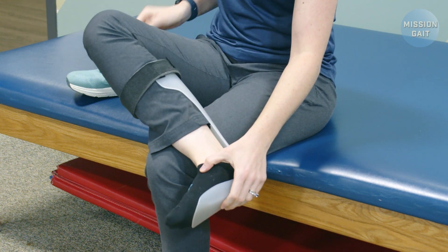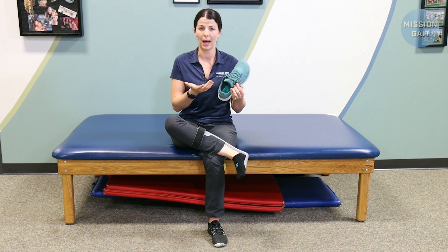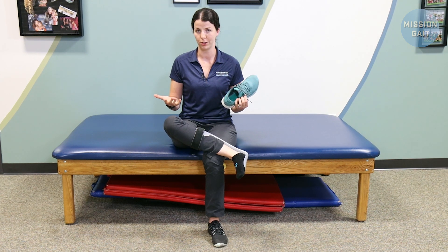And then when you're putting the shoe on, make sure you have the upper opened up pretty much as wide as it can go. It's a lot easier if you have a shoe that uses laces or a zipper closure. If you'd like more information about pairing shoes with AFOs, we have a whole video on exactly this topic on our YouTube channel.